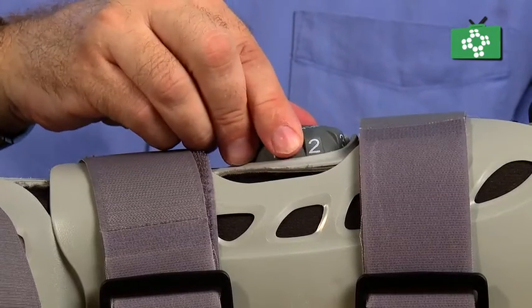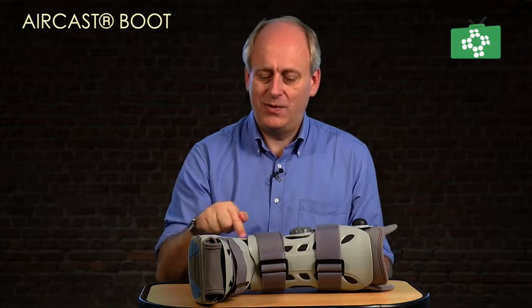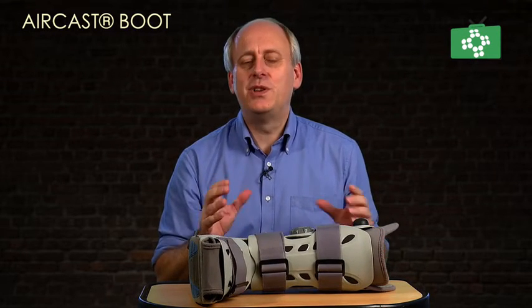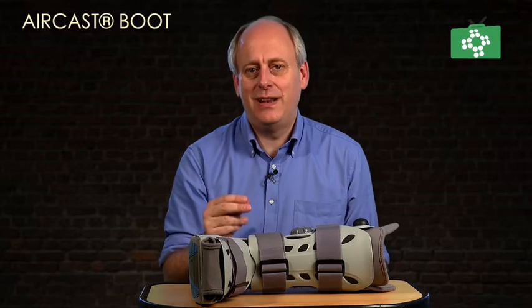Finally, you must lock it off — put it onto the fourth section, which has a little picture of a padlock on it. Position one is for the right-hand side, number two is the left-hand side, and number three is the back. As you're putting this on, you'll feel it tightening up. You could do this for somebody else, but you need to be talking to them the whole time to make sure they feel it's comfortable.